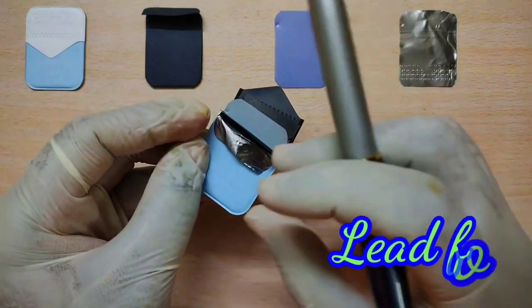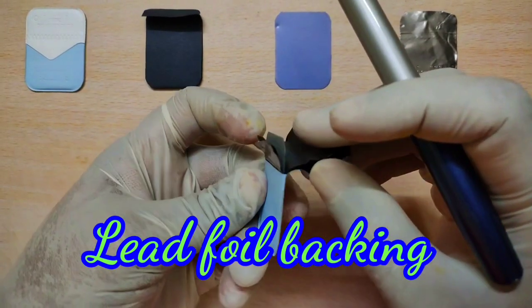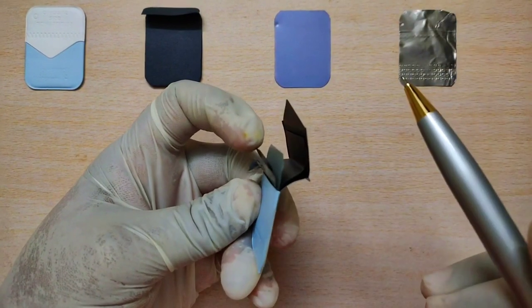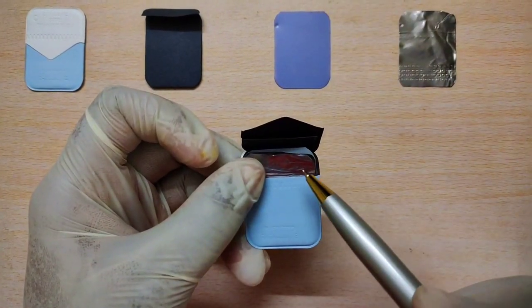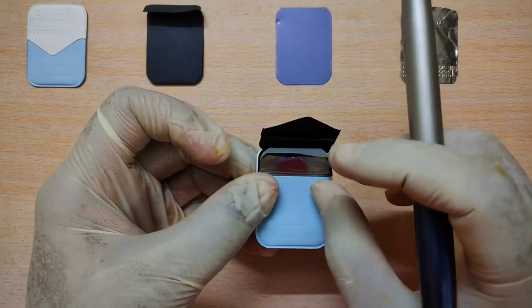The fourth component is a thin lead foil backing with an embossed pattern, placed in the film packet behind the black wrapper, away from the tube. This lead foil backing shields the film from backscattering — that is, secondary radiation — which degrades the film and reduces contrast, affecting image quality. It also reduces patient exposure by absorbing some of the residual beam. When the film is placed incorrectly — tube side toward the patient — it produces a characteristically light radiograph and also shows the embossing pattern of the lead foil.